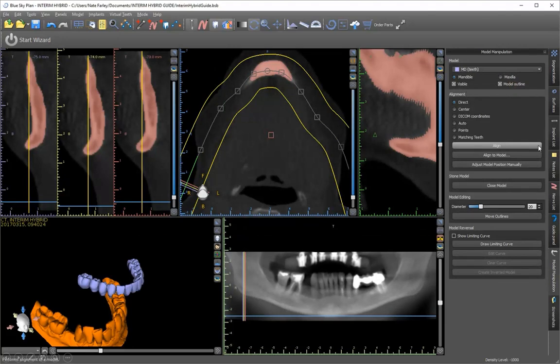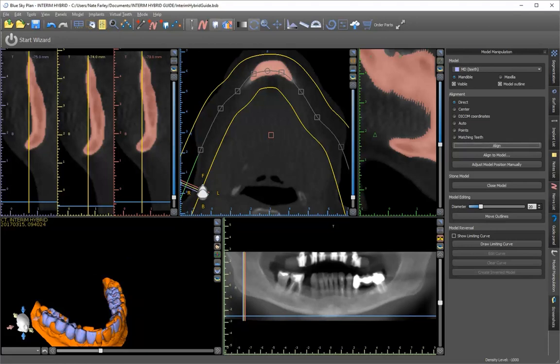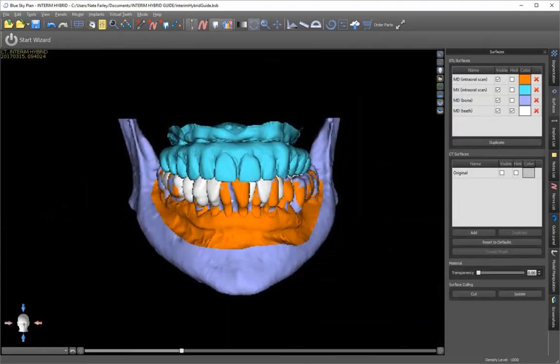Nowadays, as long as you've taken it out of Blue Sky plan, it maintains that XYZ. And when you bring it back in and you hit cancel, by default, it's going to go direct. So actually, it'll come back already aligned. If it doesn't, you can just use that direct radio button and then hit align, and it'll go right to place and then you're good to go.